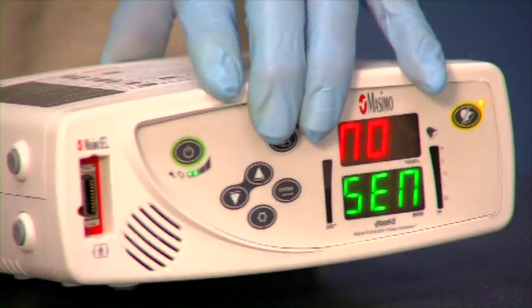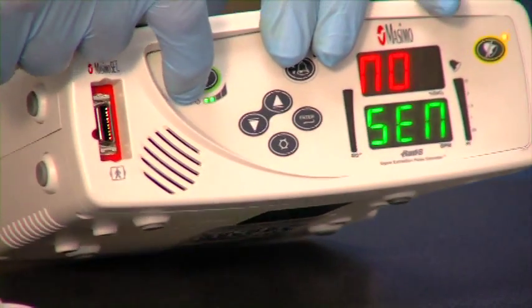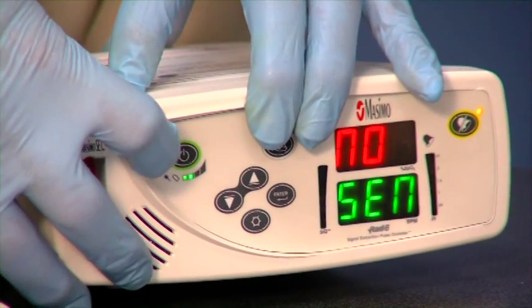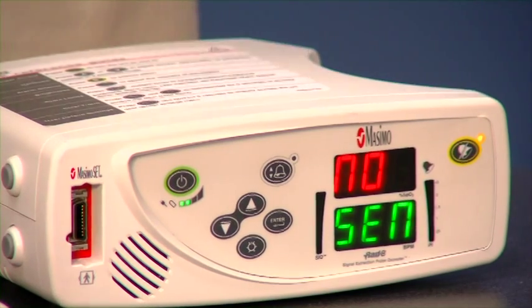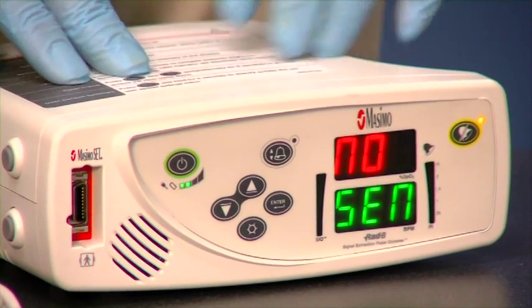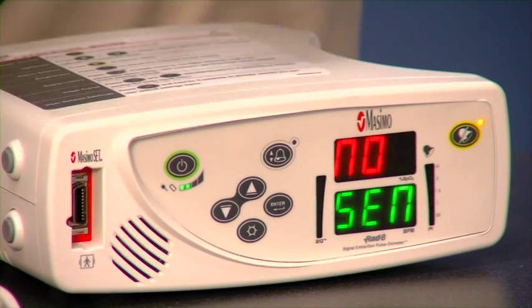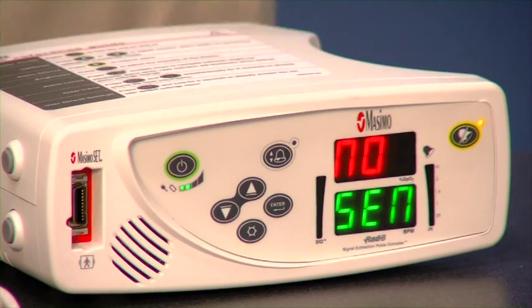Each of these lights on the front of the machine indicate approximately two hours of charge time. Right now we have two lights lit, so we've got approximately four hours worth of charge time. It's a good idea to leave this plugged in at all times to keep that battery fully charged because you only have up to eight hours. So if there's a power failure, at least we have a battery backup for a while.